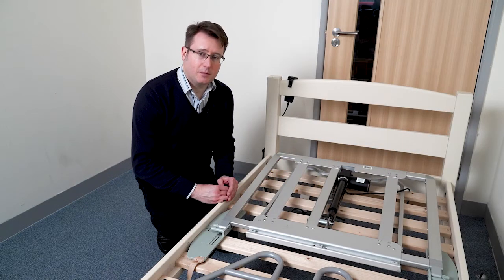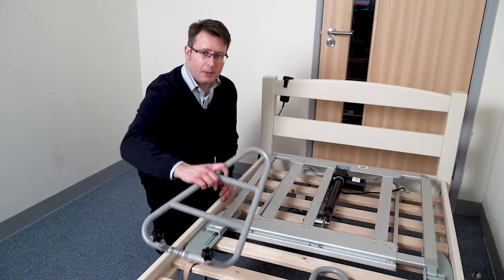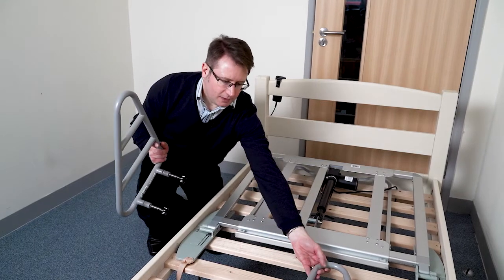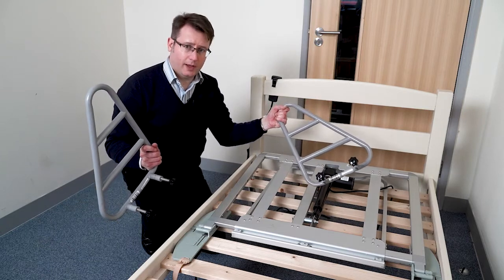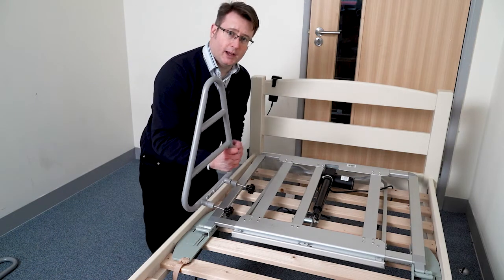One of the more popular features of the DreamMaster Lite mattress elevator is the optional side rails that can come up and down with the backrest. They are very specifically left and right-handed, which is from the client's perspective lying on the bed on their back. I'm going to pop the left one out of the way and work with the right-hand one.